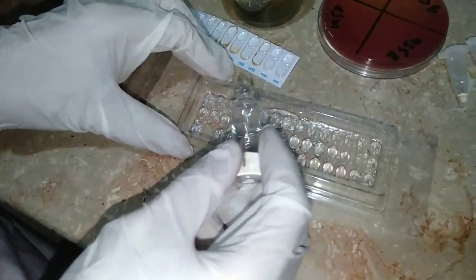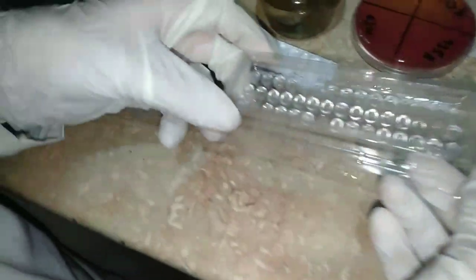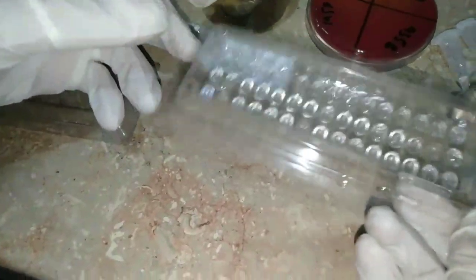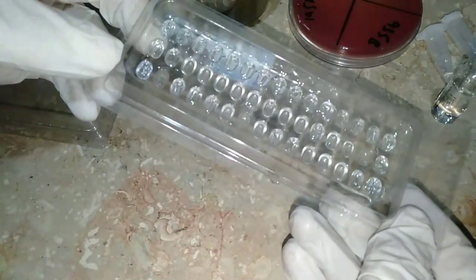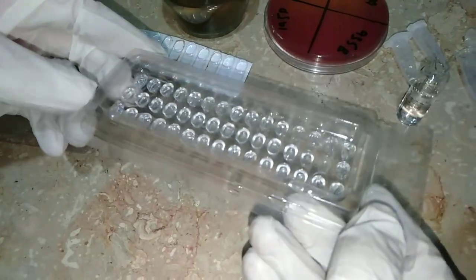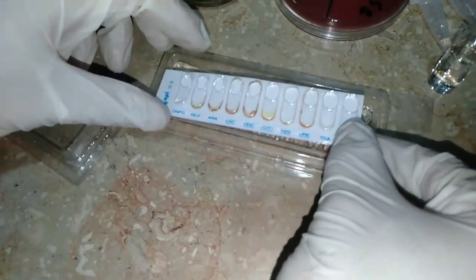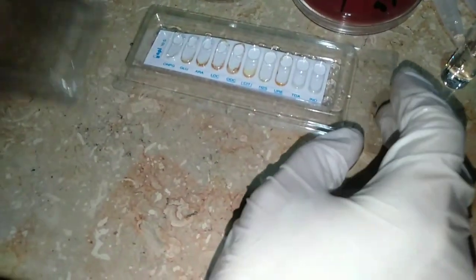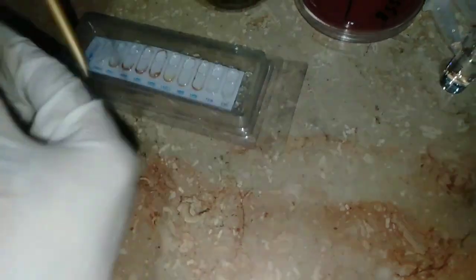The water is a little bit low, so we will add more water from the sterile water — a little bit more. Then we gently shake and mix it so the wells will be filled up with water. Then we take our API strip and place it into the tray.